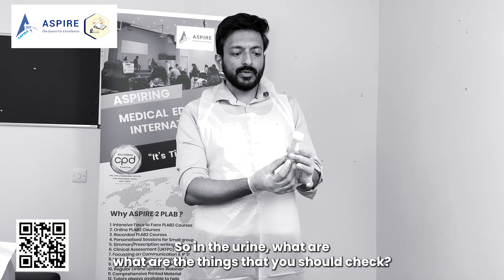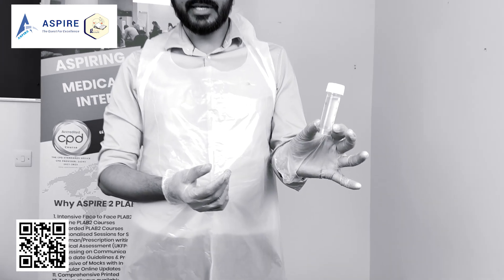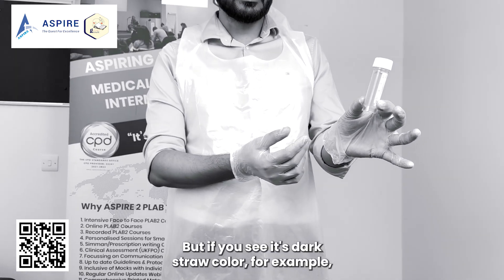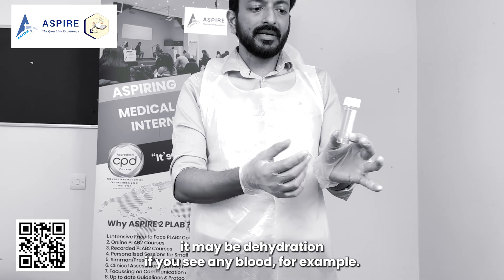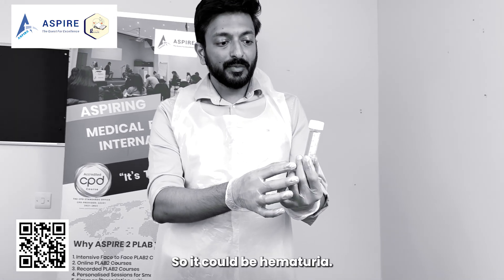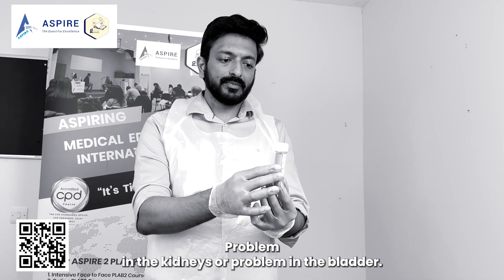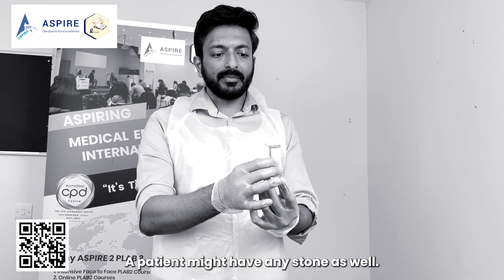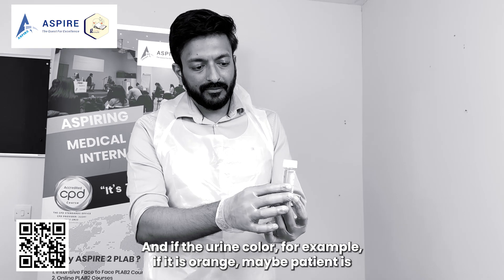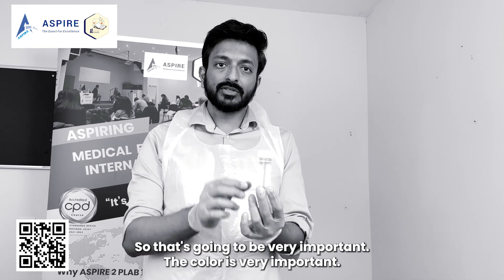In the urine, the first thing to check is the color. Normal urine color is straw color, but if you see dark straw color it may indicate dehydration. If you see any blood, it could be hematuria — the reason could be a problem in the kidneys, bladder, or a stone. If the urine color is orange, the patient may be taking rifampicin, so the color is very important.